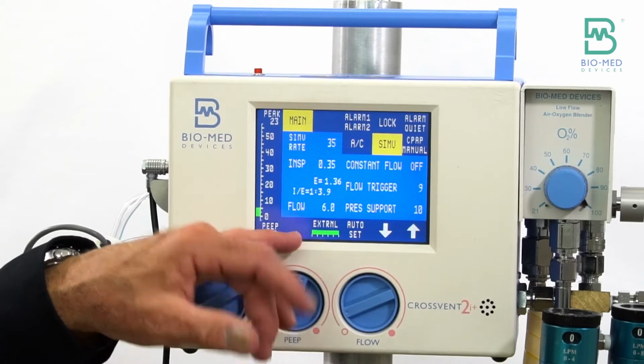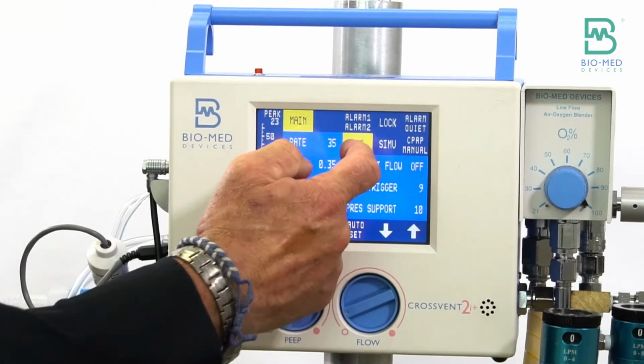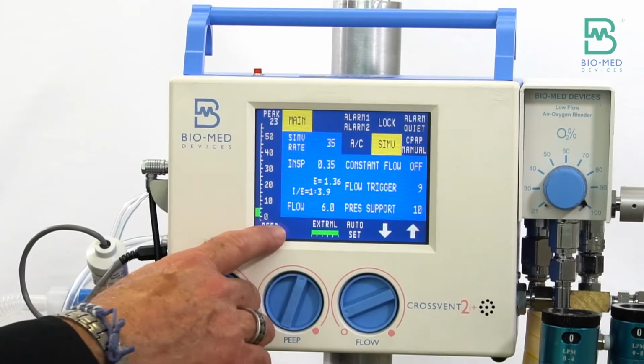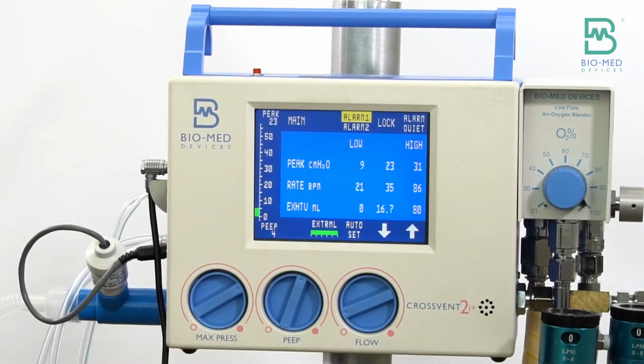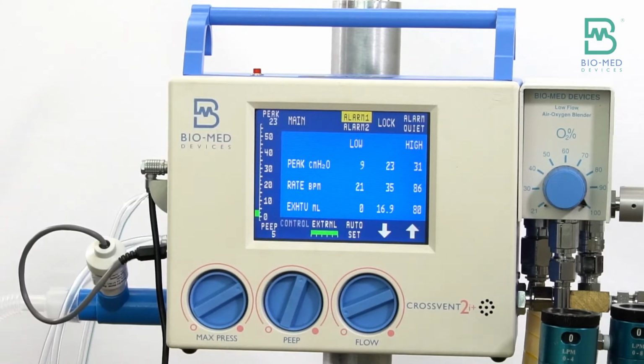So that means what I'm going to have is one of three things that are showing up here. Control at a rate of 35 here. When I switch to SIMV, you notice how rate becomes SIMV rate. And you're going to see either control or you're going to see spontaneous or assist. Now, the easiest way to look at these is if you look at the volumes, you can see that there's a difference between 17.4 versus 10. That's the difference between delivering 10 centimeters of pressure support above your PEEP, so 15, versus the 20. You can look at it right there in the volumes.